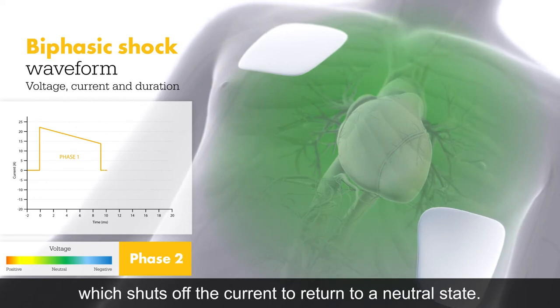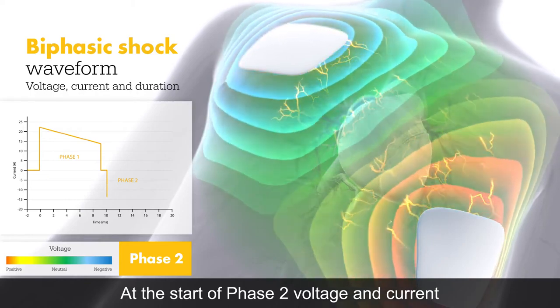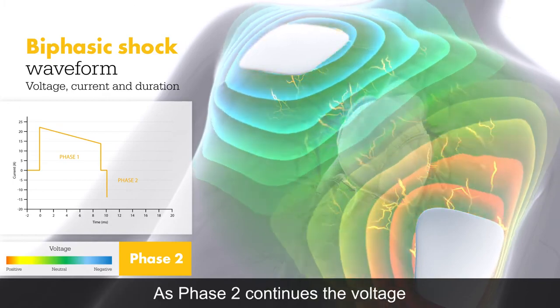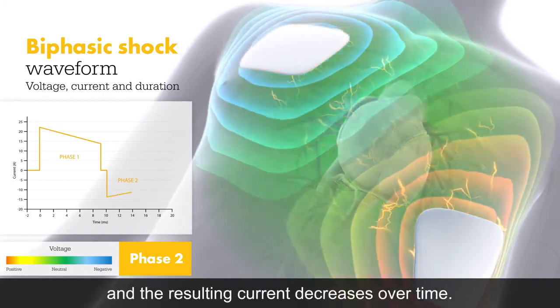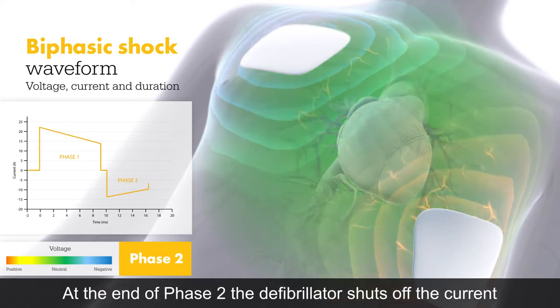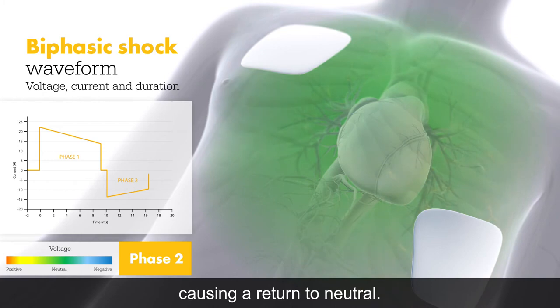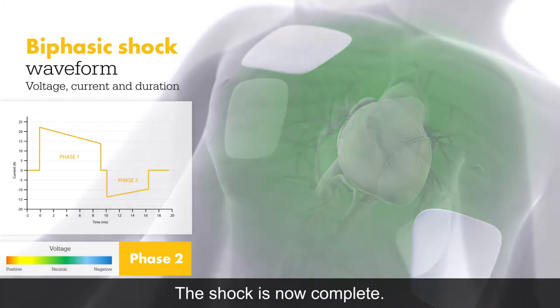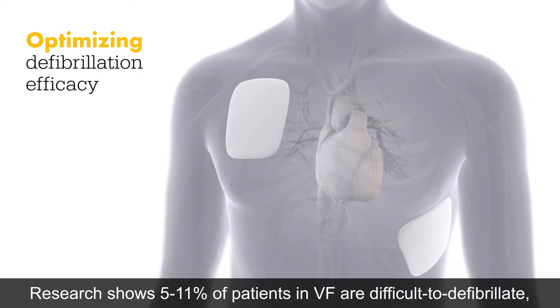At the end of phase one, the defibrillator stops applying voltage, which shuts off the current to return to a neutral state. At the start of phase two, voltage and current are quickly applied in the opposite direction. As phase two continues, voltage and current decrease over time. At the end of phase two, the defibrillator shuts off the current, causing a return to neutral — the shock is now complete.